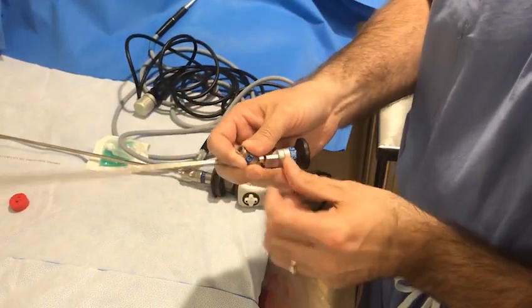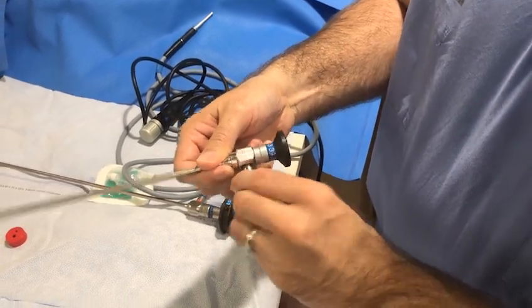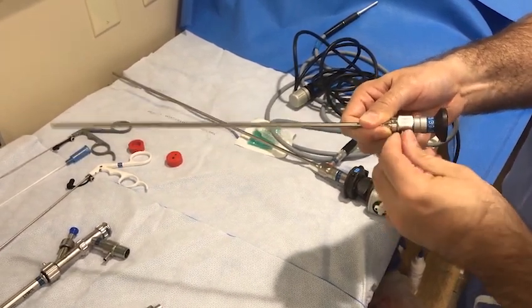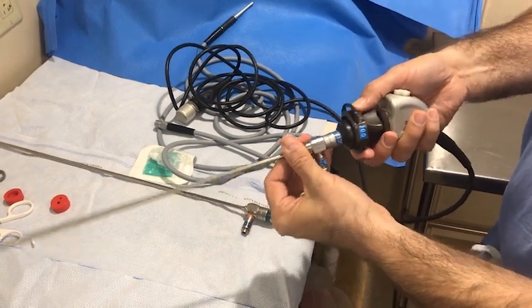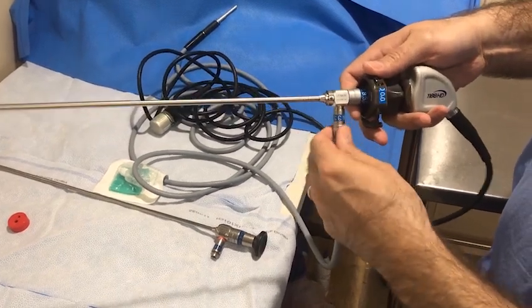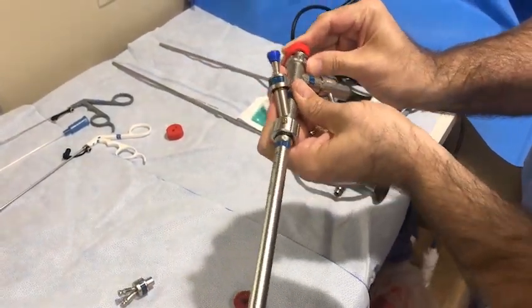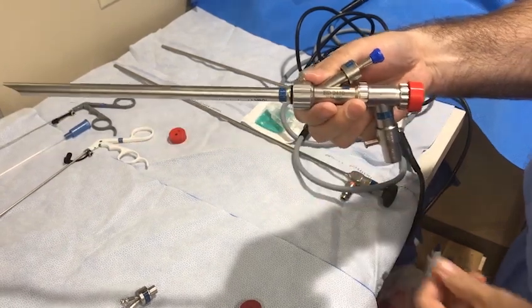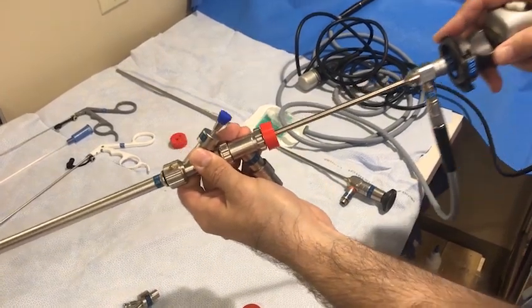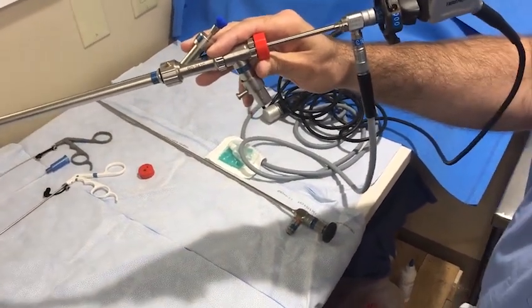Choose the shorter 36-centimeter telescope. Attach the connector, then attach the camera, and finally attach the light source cable. Attach the desired silicone red cap and insert the telescope. Insertion of instruments, whether using an open or closed system, is identical with the tracheoscope as with the bronchoscope.